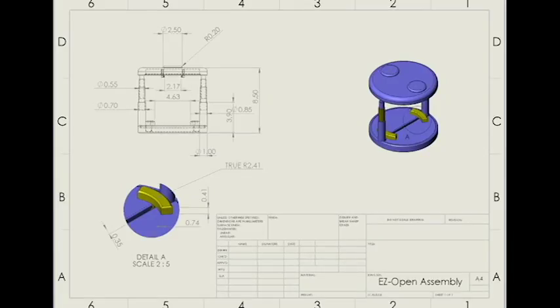The bottle opener will also adjust to the size of numerous bottles to address the compatibility aspect of the device. It's no good if the device works on only one type of pill bottle. Medicines are usually packaged or delivered in different types of pill bottles depending on the type and dose.